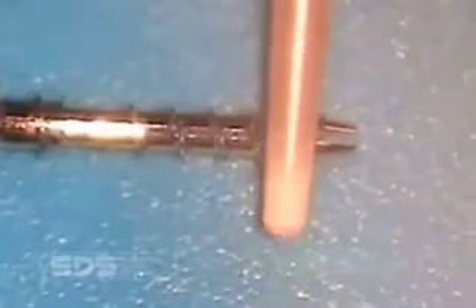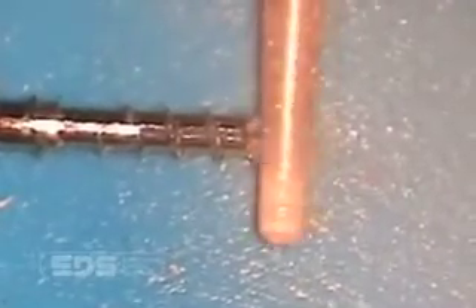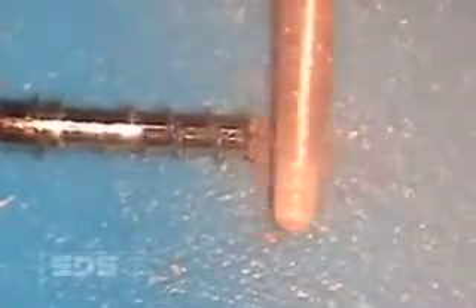It is important to cut both legs at the same time. It is not necessary to reshape the apical conical tip. Each thread at the apical end is one millimeter apart. You can use this as a gauge — whether to cut one, two, three, or even up to four millimeters of the post from the apical end in order to make sure that the flange does seat completely.